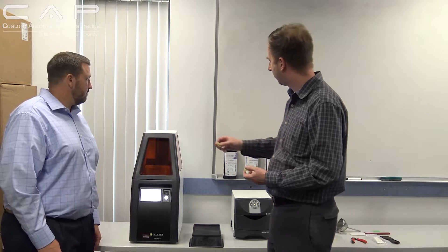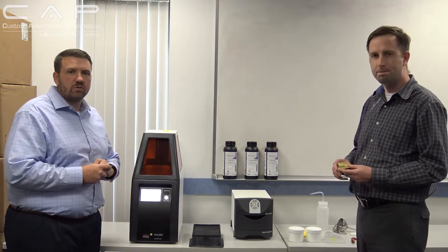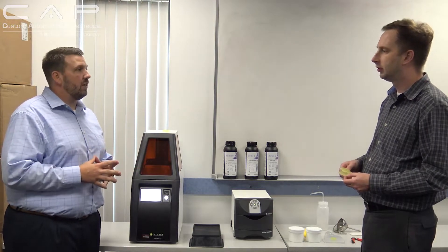So Andy, tell us a little bit about the other materials that we have for the printer. Sure. So we actually have a print ortho — that's a resin that you would use for different things like splints. We also have a print guide, which would be for your surgical guides, and then we have a tray material, impression material. You can use that for base plates, custom trays, and different things like that.